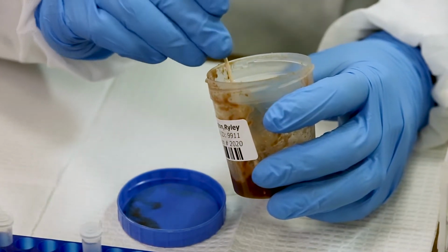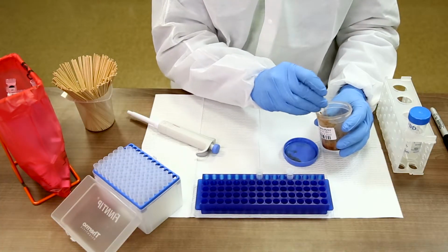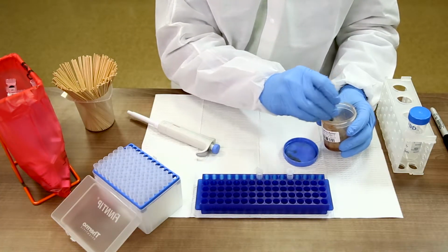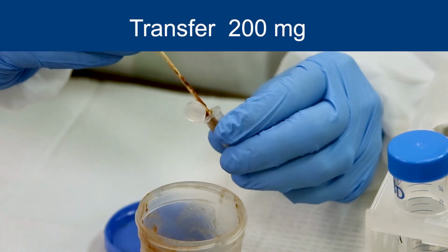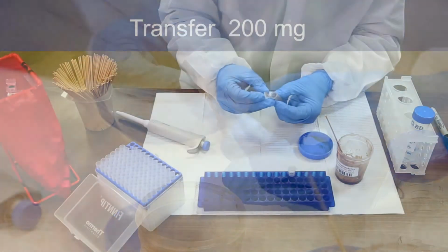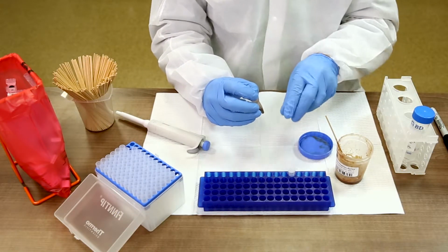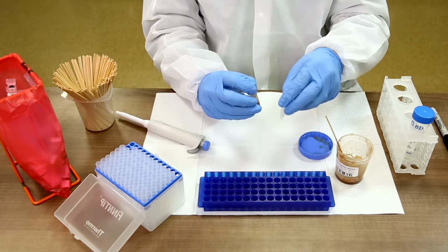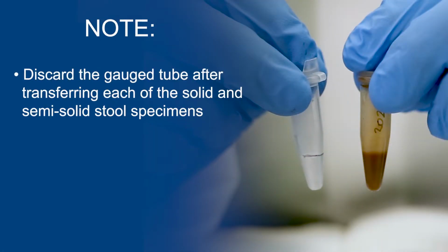Vigorously homogenize the stool sample using a wooden applicator stick. Transfer 200 milligrams of stool, equivalent to the volume in the gauge tube, into a new clean centrifuge tube identified as the sample tube. Note: discard the gauge tube after transferring each of the solid and semi-solid stool specimens.